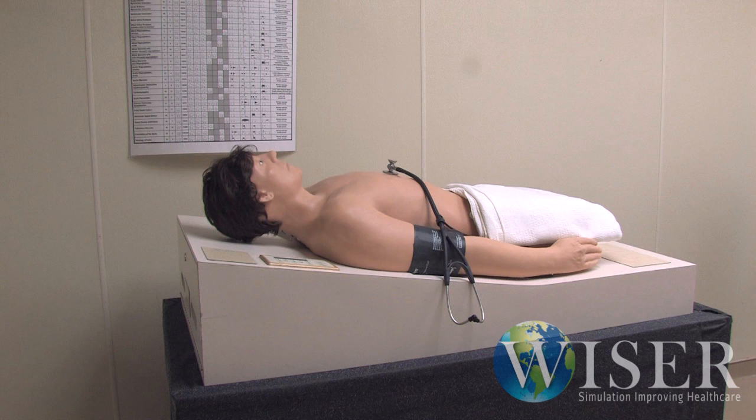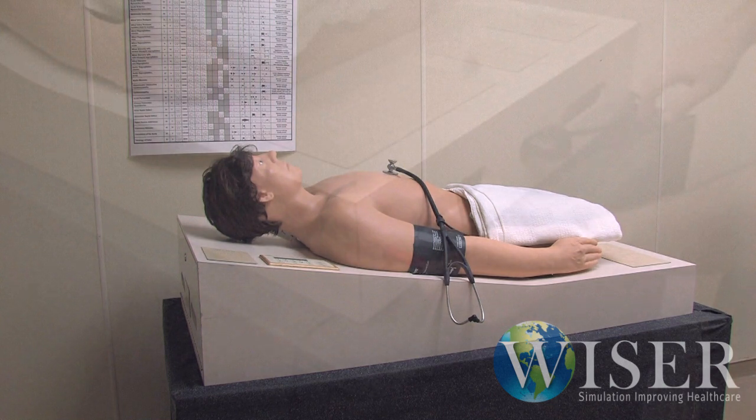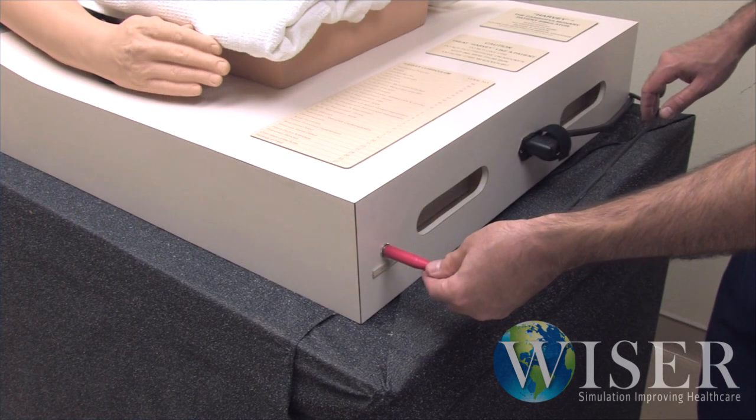If you would like to provide Harvey's cardiopulmonary sounds to a much larger group of students at minimal cost, wiring the simulator to a PA system in a classroom or simulation lab should solve your problems.